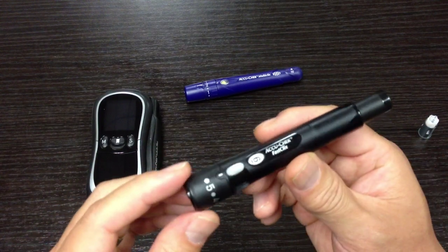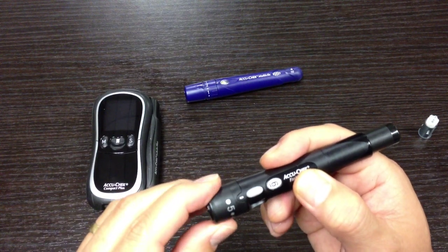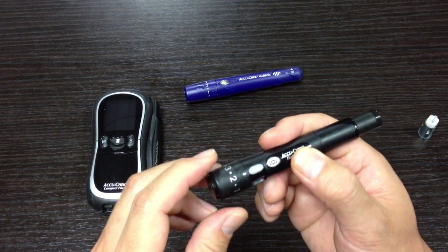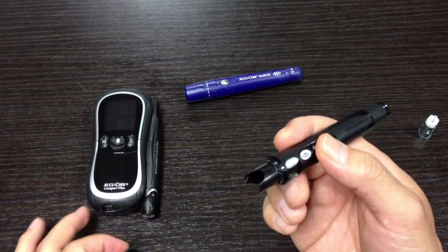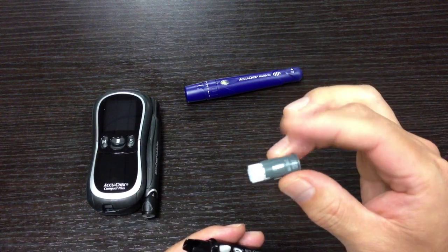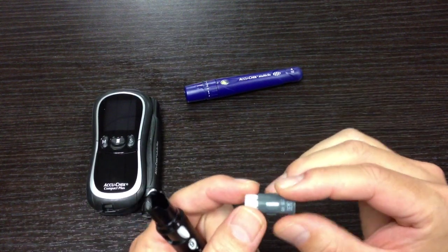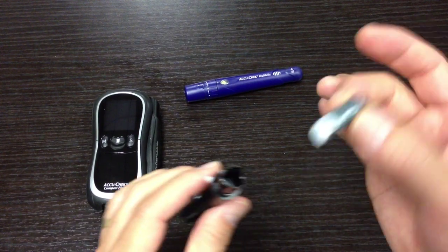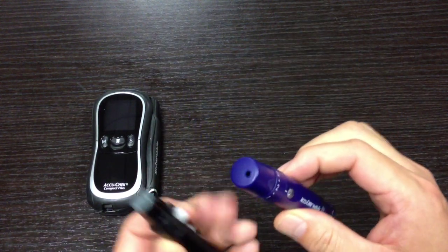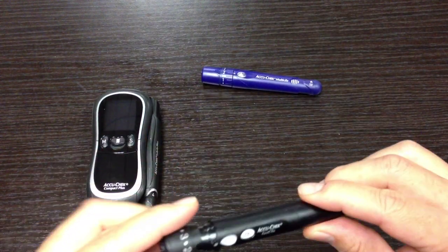This is what the new one looks like — pretty sleek. It's got the same numbering system so you can change the depth of the needle. If you have thicker skin you can go higher, or lower if you have thinner skin. You pull off the cap and the cartridge goes in there. The cartridge is a little different — a bit thinner than the previous one. You just put it right in, press down, and going in is very simple. That makes it a lot easier, and the cap goes back on like that.